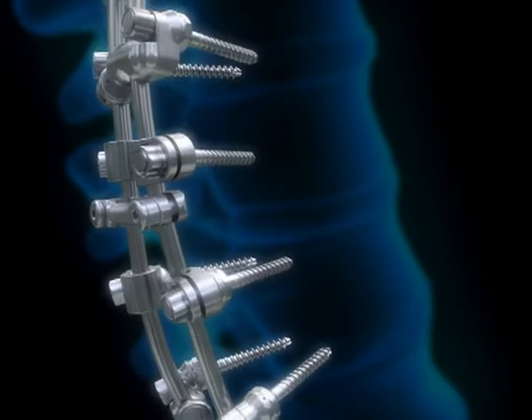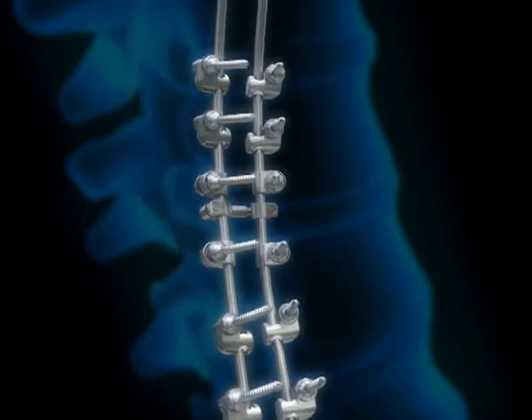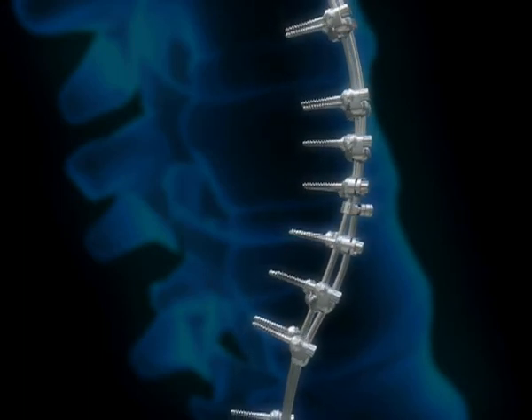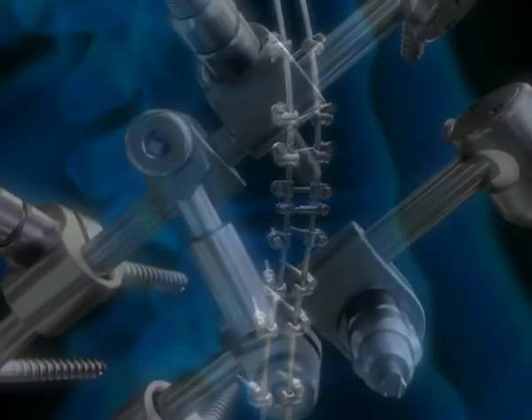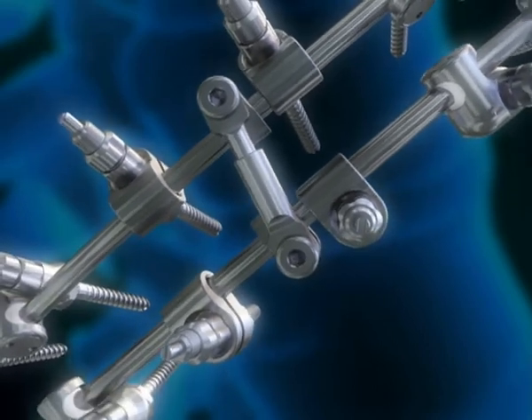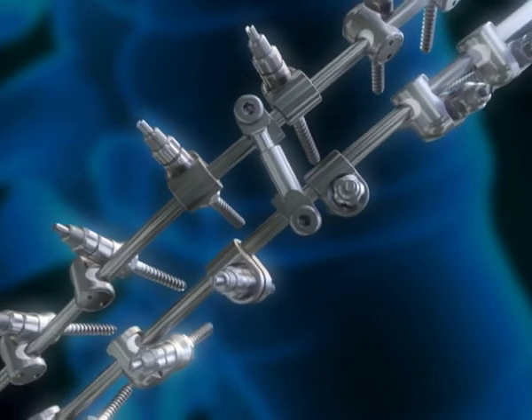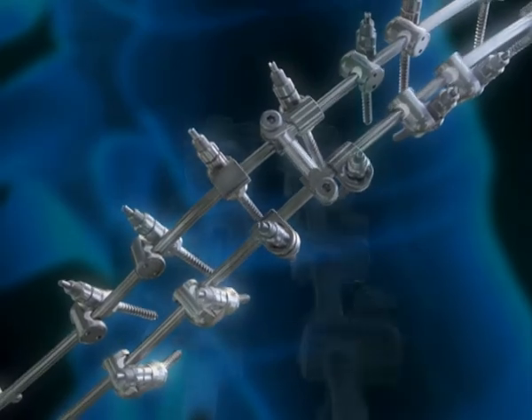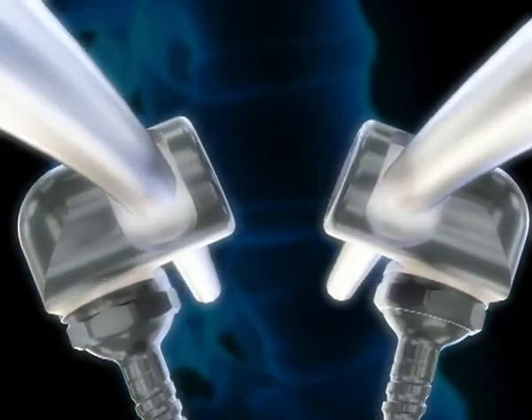The new Orthobiome system allows for correction of the deformity without spinal fusion and can grow with the adolescent spine. Therefore, the deformity can be corrected at an earlier stage of progression. All connections in the system are dynamic, allowing segmental micro-movements which prevent spontaneous fusion of the single segments. The screws can slide along the rod and the system can grow with the spine. At the end of the growth period, the system can be removed and form and function of the spine are maintained.